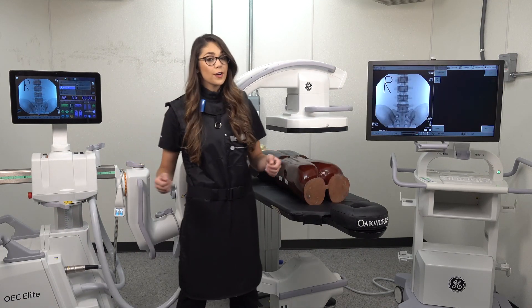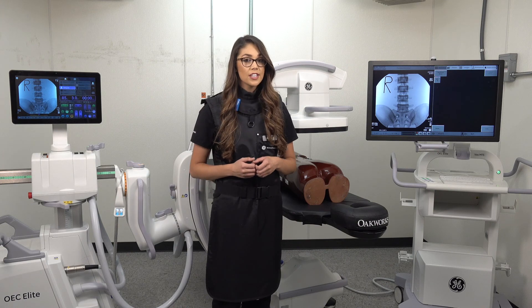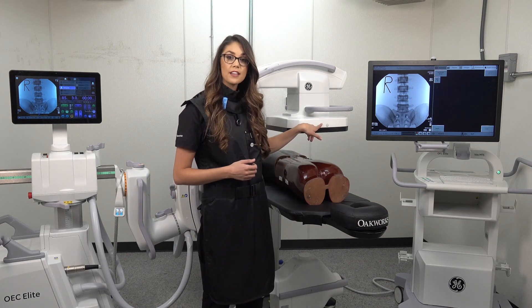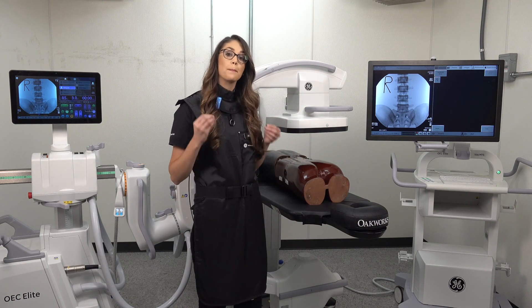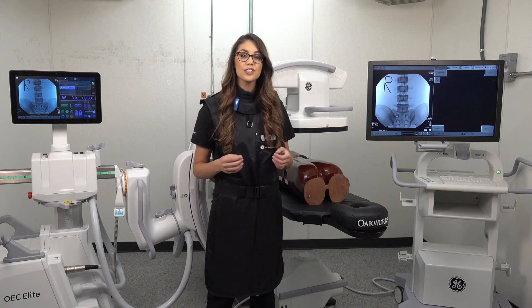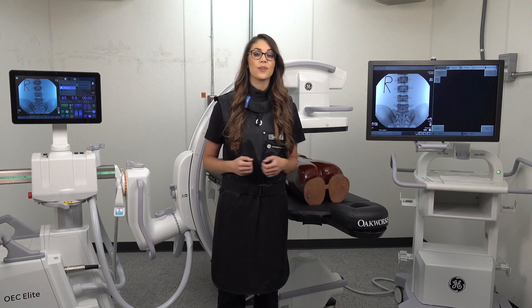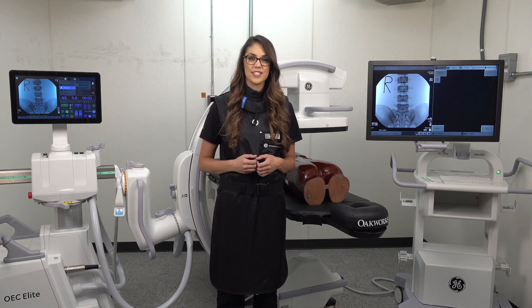That's about it for image orientation. Just remember this smiley face — that is the best indicator to assist us with anatomically orienting our image.